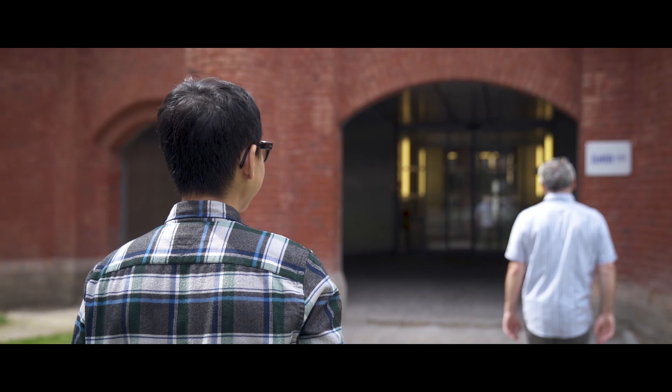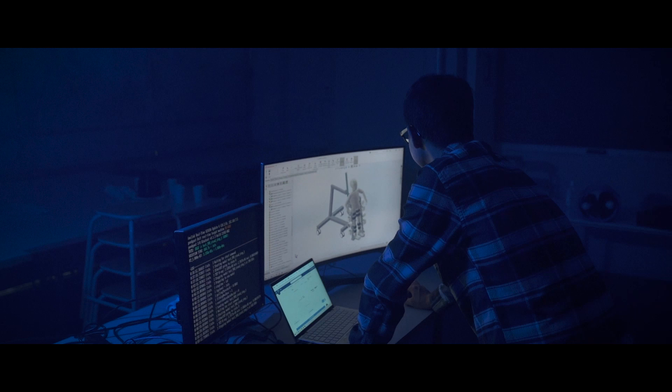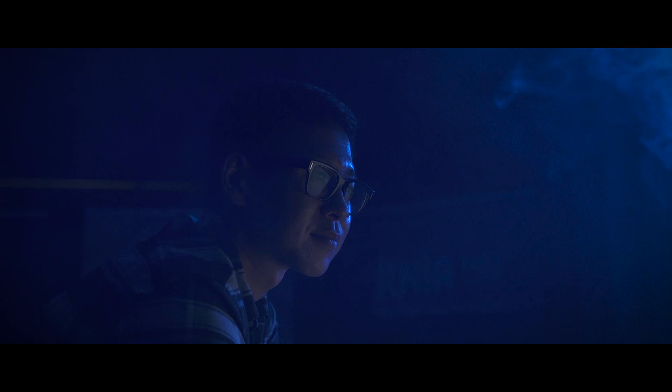To create the exoskeleton structure, we put together a working group with technicians, mechanical and biomechanical engineers and clinicians using the SolidWorks software to define all the parts of the exoskeleton. In SolidWorks, we have a module that allows direct access to the 3D Experience Marketplace, where we can choose the part to manufacture and machine tool it very easily.